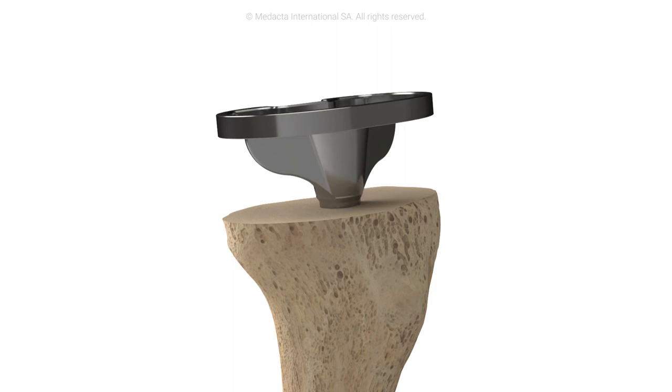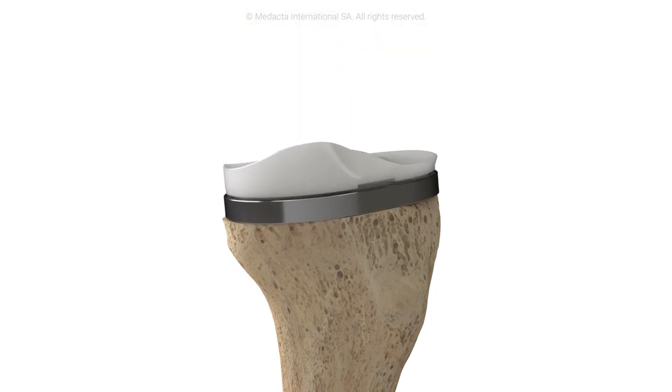Once the tibial component is in place, the native tibial articular surface is restored.